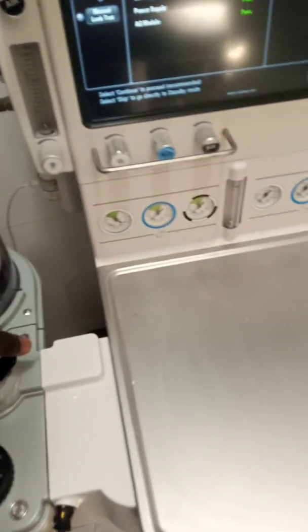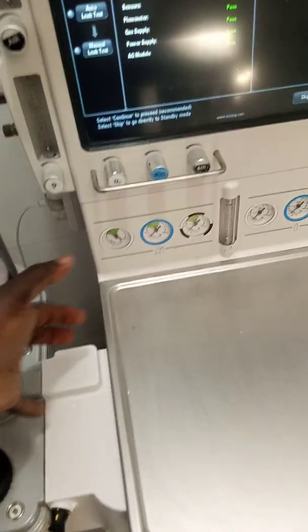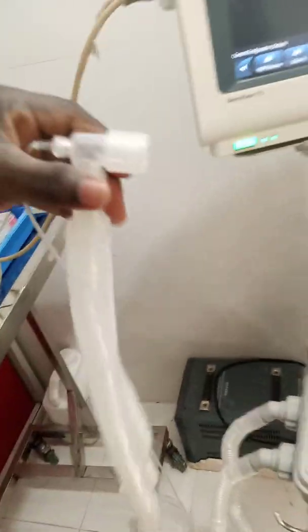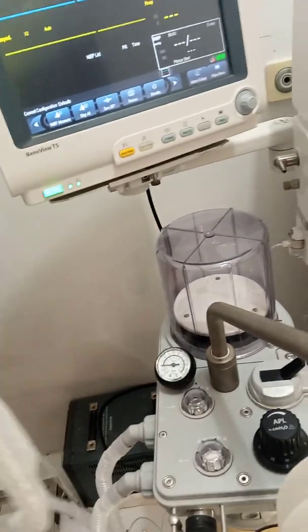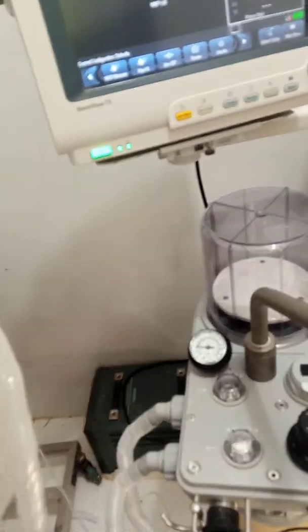We have a switch to automate or turn the machine to a manual position. We also have our breathing circuits positioned here. This right here is connected to the endotracheal tube that helps in the delivery of oxygen to the patient.